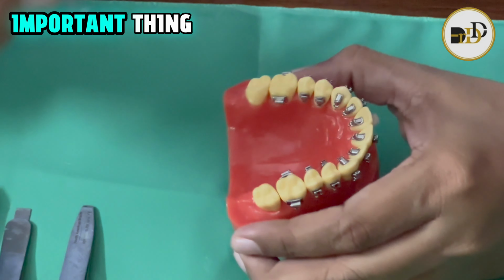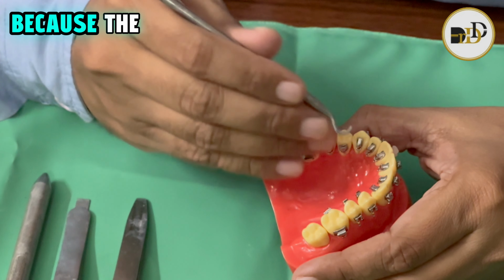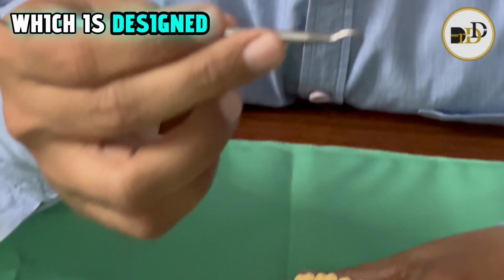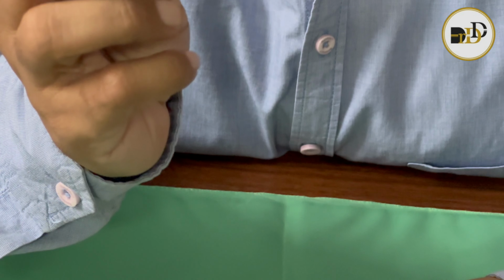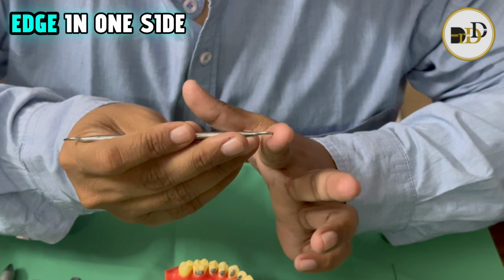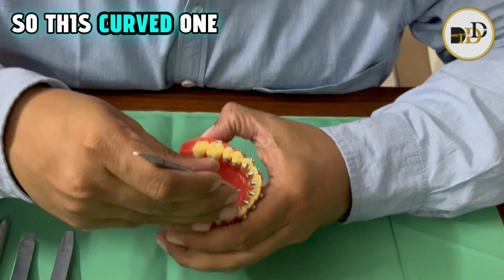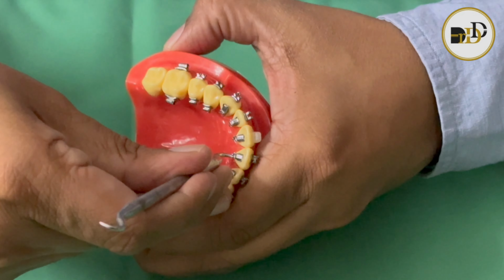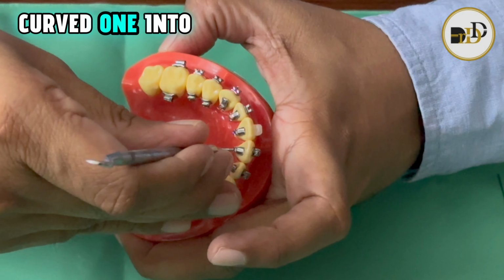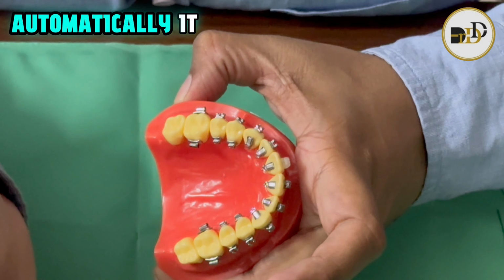And next, the main important thing for the self-lingual is to open the door, because the bracket is a self-ligating bracket. This is the tool designed specially for self-lingual. It has a curved edge on one side and a straight edge on the other. The curved one is for the upper anteriors, where we keep the curved one into the notch, and when we press like this, it automatically opens.